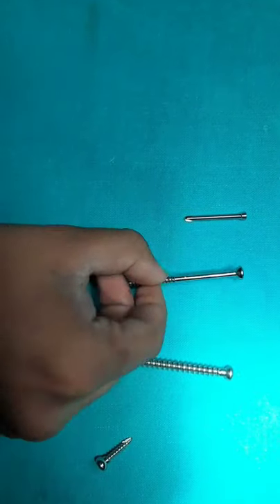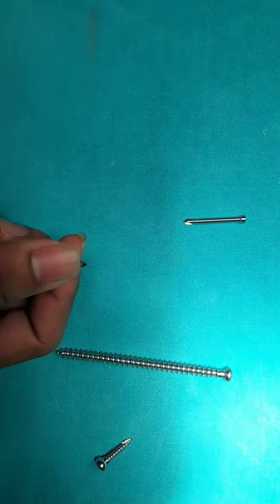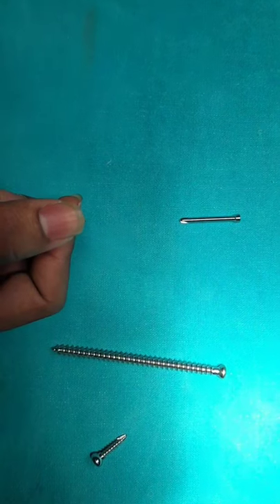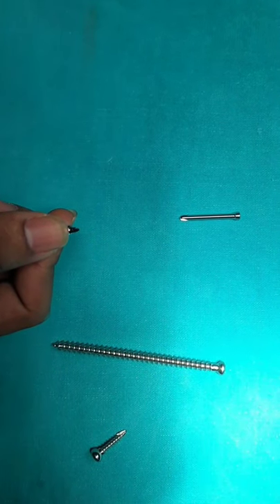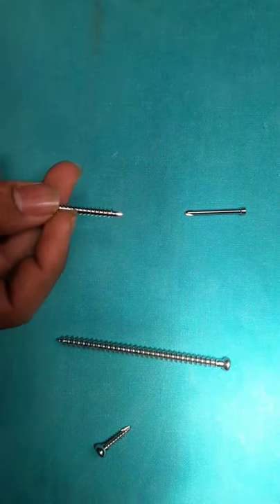This is the trocar tip. This trocar tip does not produce threads in it but rather displaces the bone as it advances.